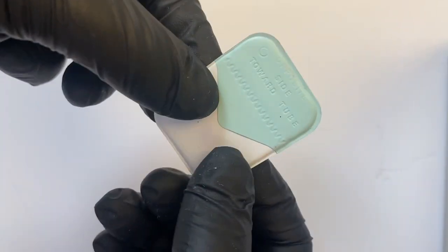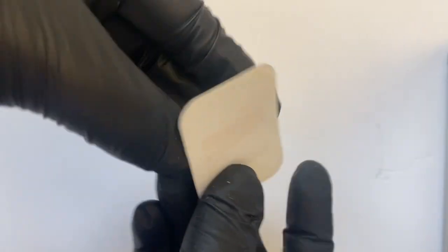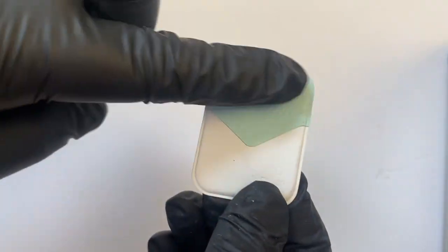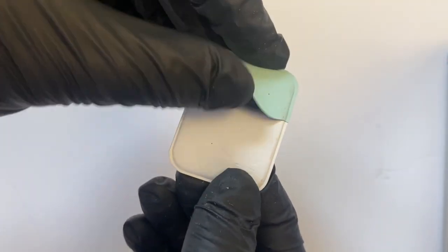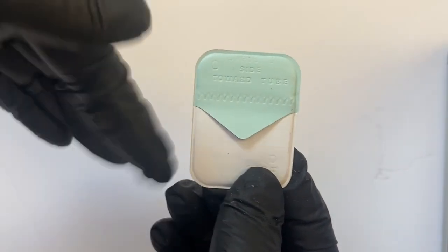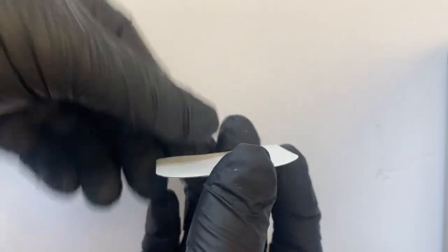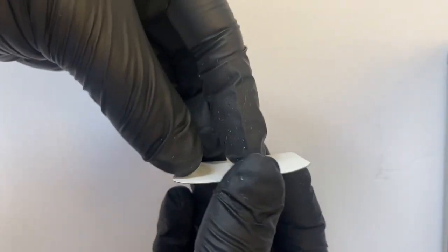As you can see, the packet's outside is plastic. It has two sides. The colored side, or this part with the flap, goes towards the patient's middle of the mouth or away from the teeth. This part is going to be touching the teeth because you want the tube head to hit the solid, not the flapped part.